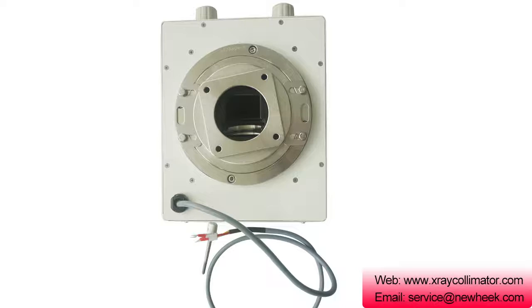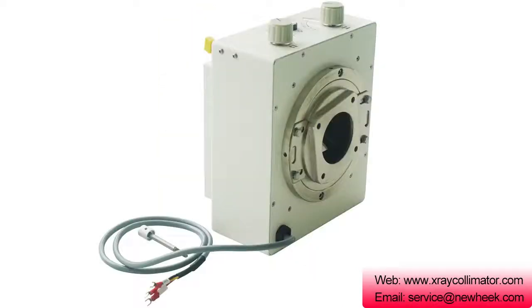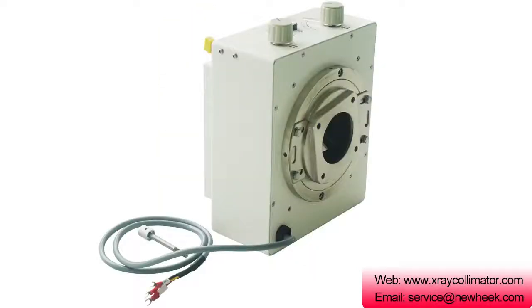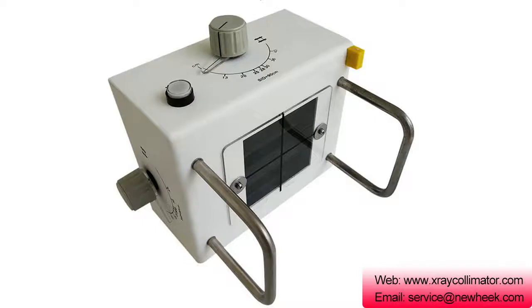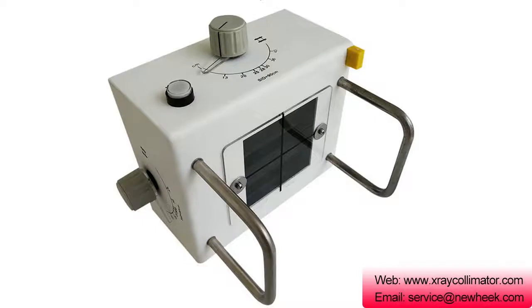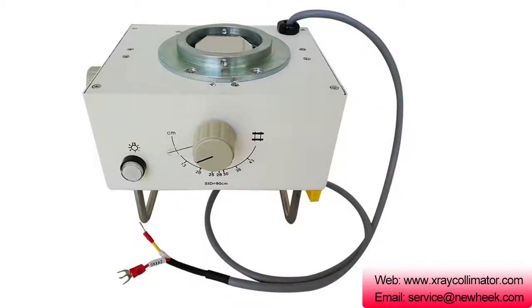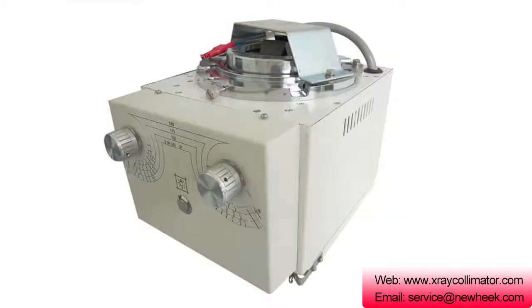Its function is to control the illumination field of the X-ray tube output line so as to meet the requirements of X-ray imaging and diagnosis, reduce the projection range, and avoid unnecessary doses.